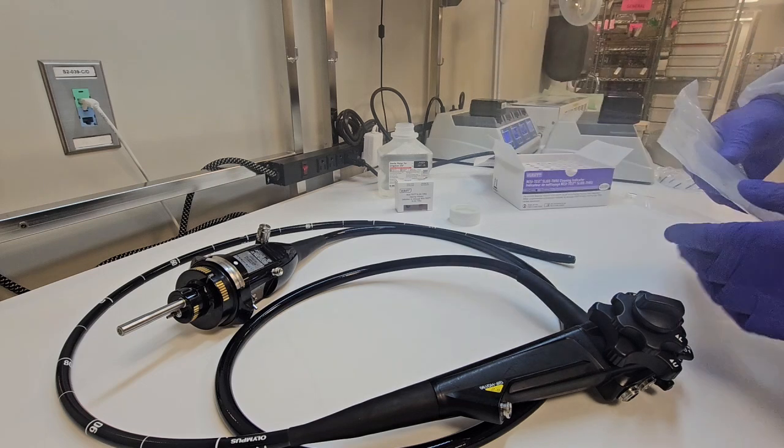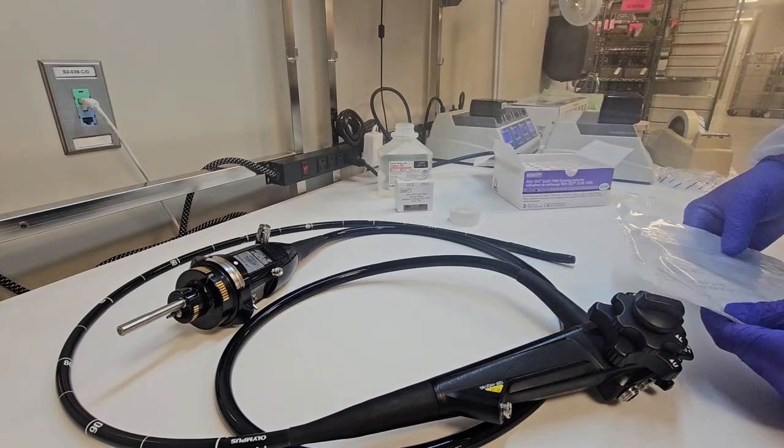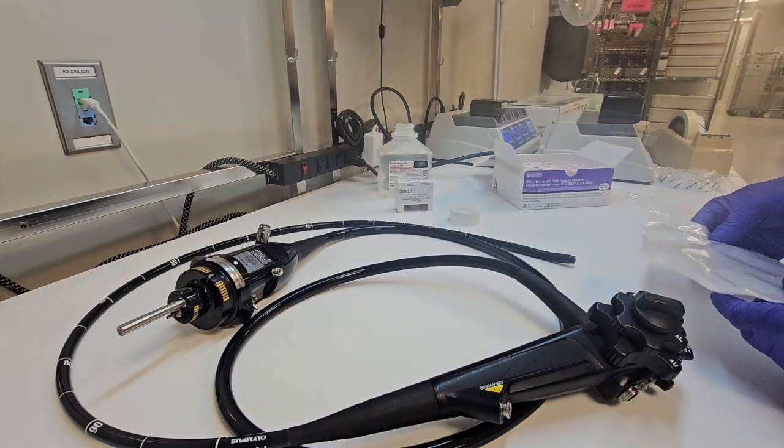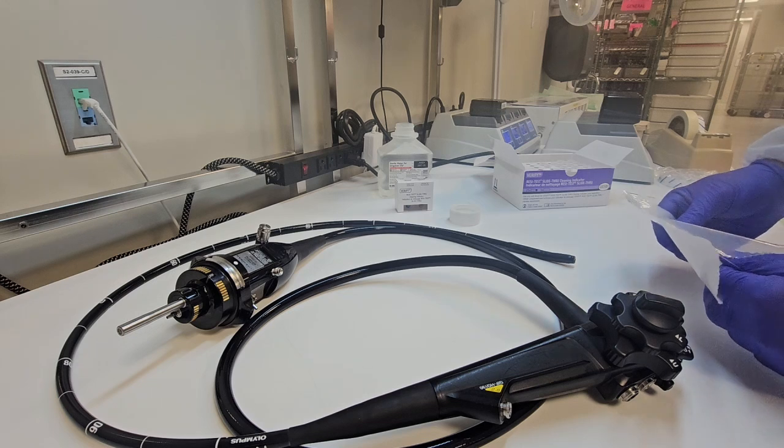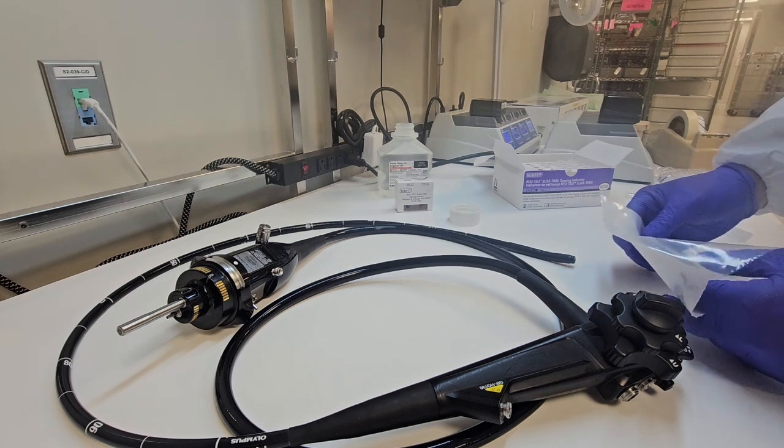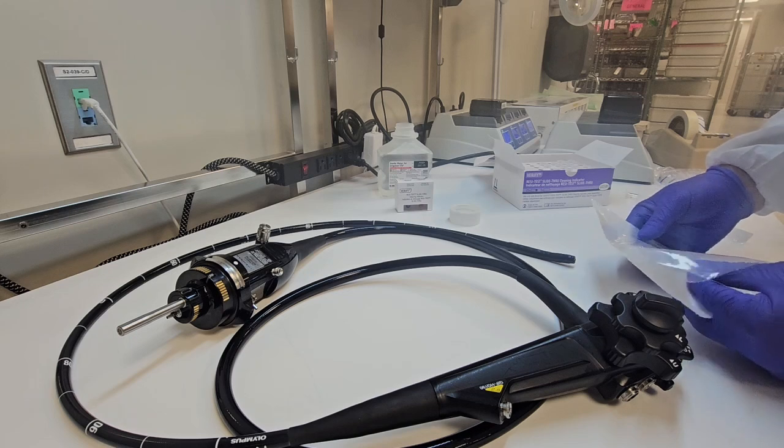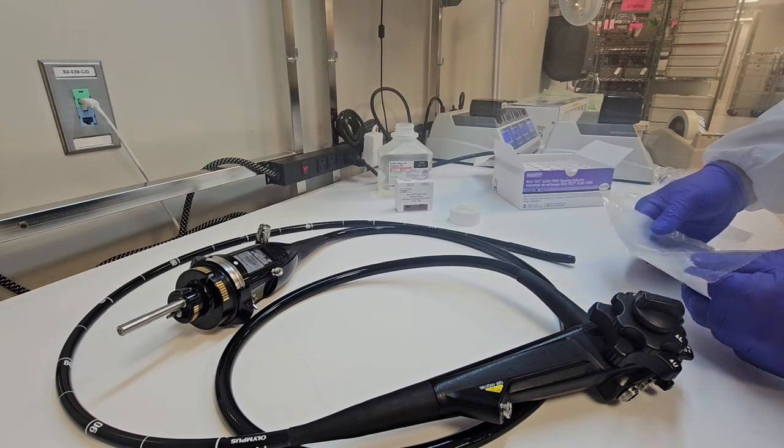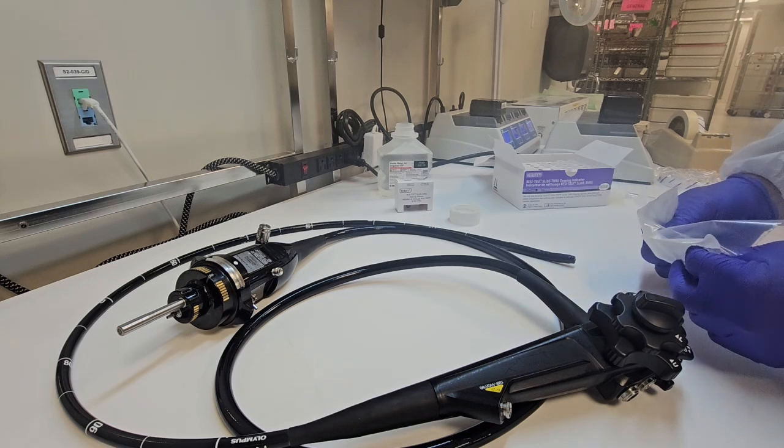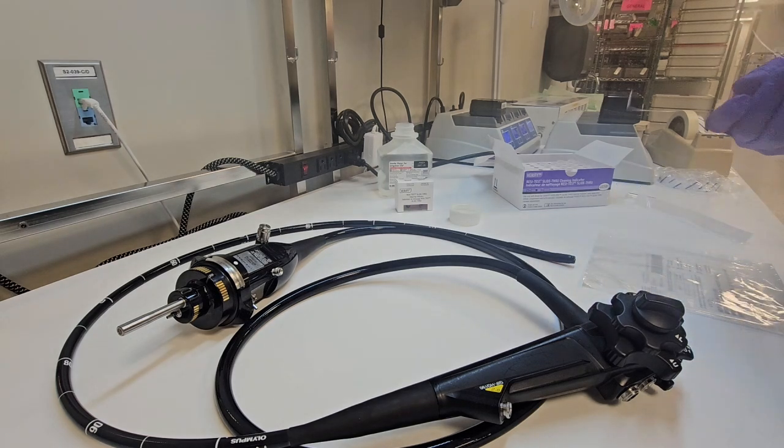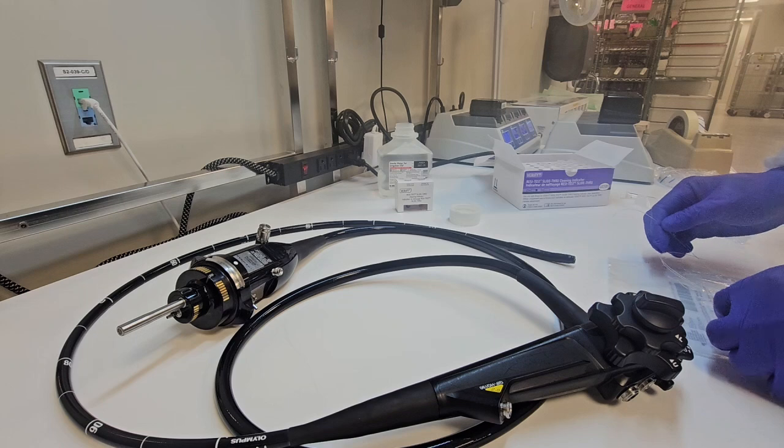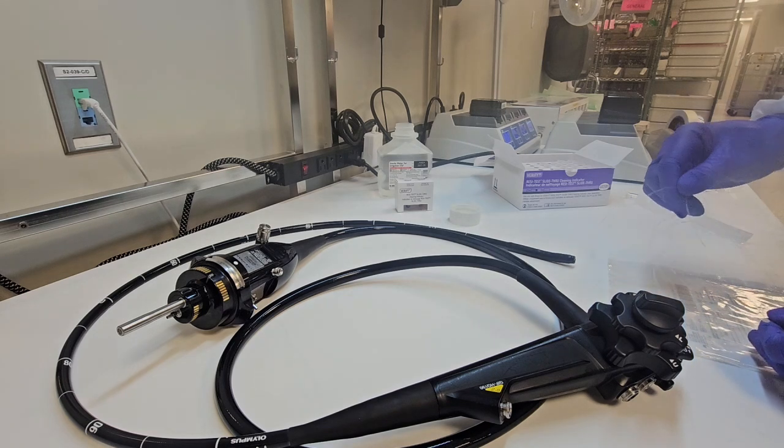With that being said, after the manual cleaning process, the channels should be blown out with instrument air to remove the residual moisture from the cleaning process. You do not want to mix the water or solution from the test kit with the water or solution from the cleaning process.